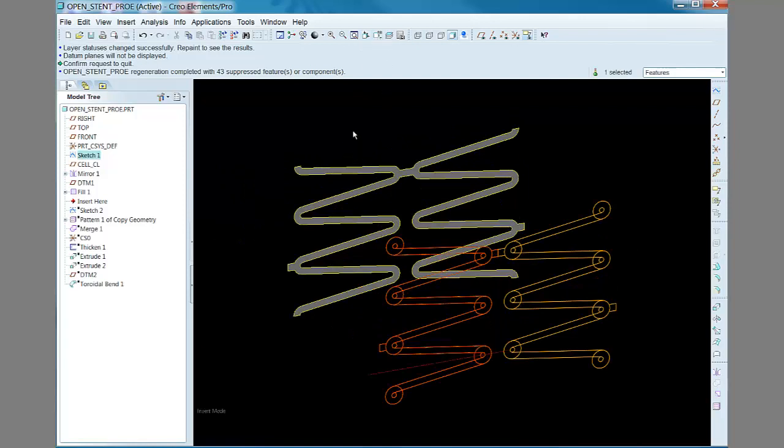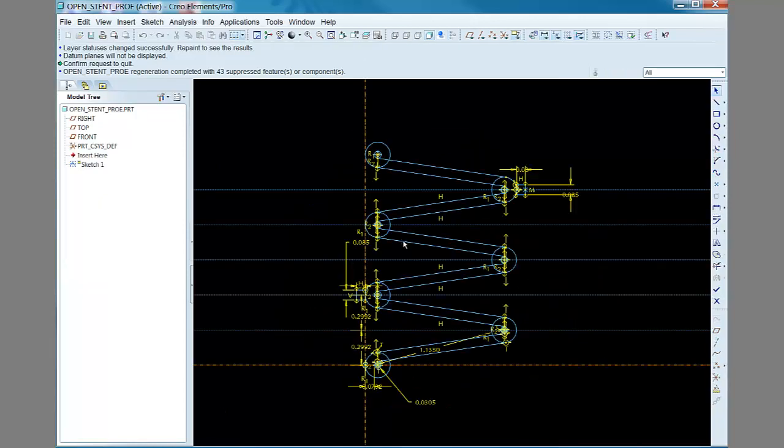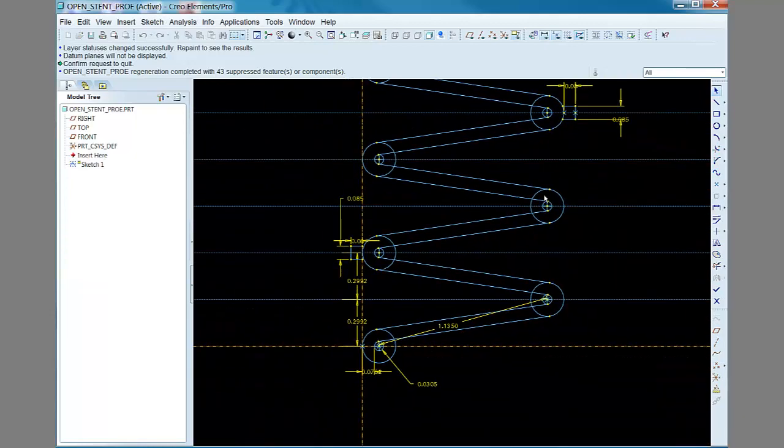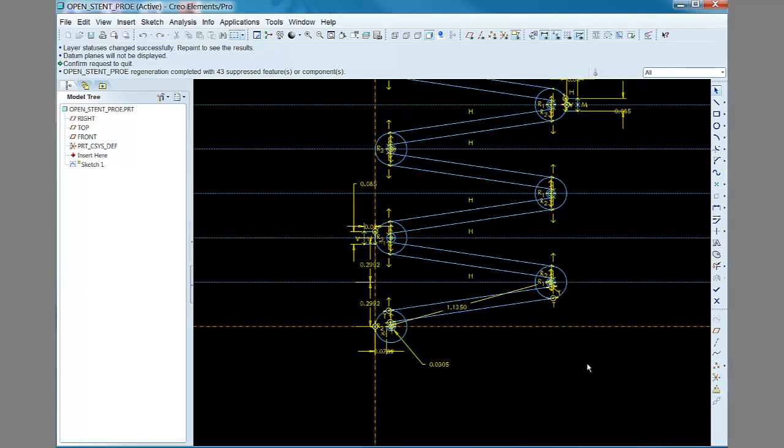Flexing the dimension shows how easily the unit cell geometry is transformed between different values of the eventual outer diameter. And again you can see how the edges of the flat surface follow the curve exactly.